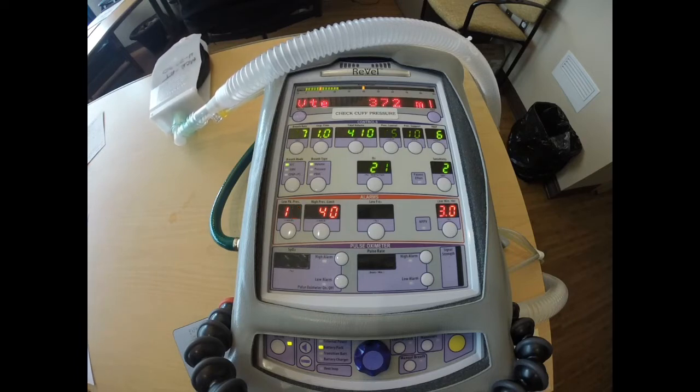So, indications of pressure-regulated volume control. PRVC could be used efficiently in patients who require the lowest possible pressure and a guaranteed consistent tidal volume. Those patients who are suffering from acute lung injury or acute respiratory distress syndrome, especially if they are sedated, those patients who we need to maintain a minimum peak inspiratory pressure in, those who we need to guarantee their tidal volume or minute ventilation, patients who will have very little increased work of breathing associated with PRVC when it's being used appropriately.